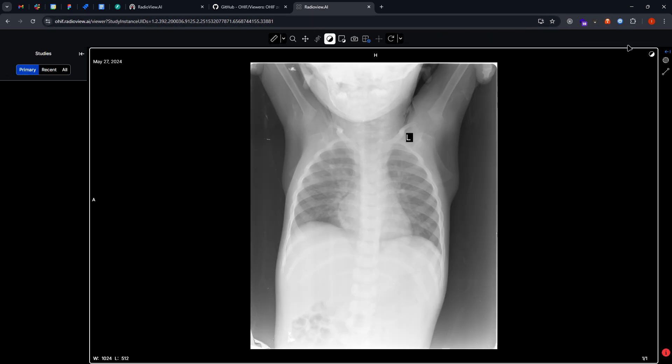If I click on it, if I copy that link, paste it here and hit enter, yeah, we have removed the logo and we have removed some of the components.